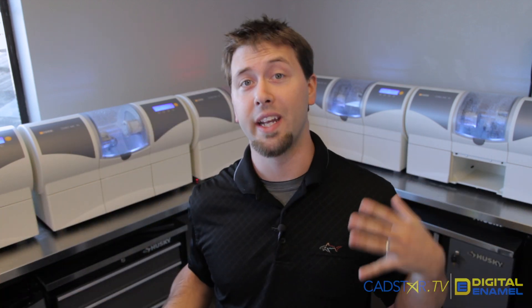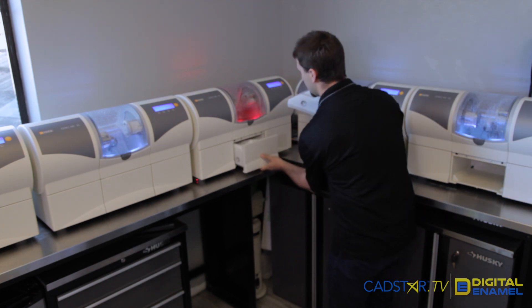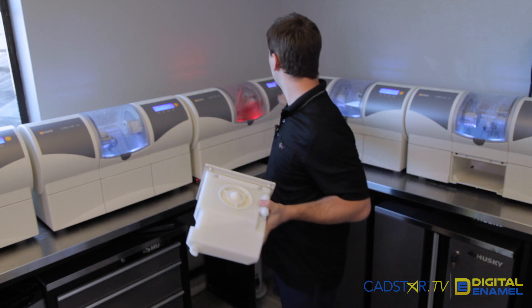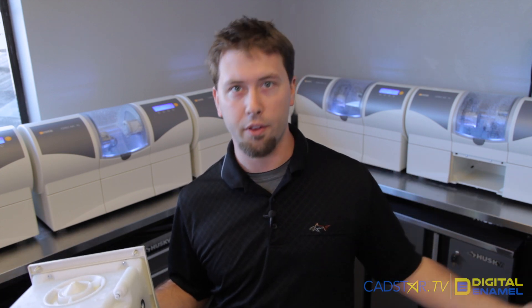The way we've found to get around this issue the fastest is to have an extra tank ready to go. That way you switch them, and you're only stuck cleaning the old one while the machine stays milling. A 12-minute milling cycle doesn't turn into 20 or 30 minutes.